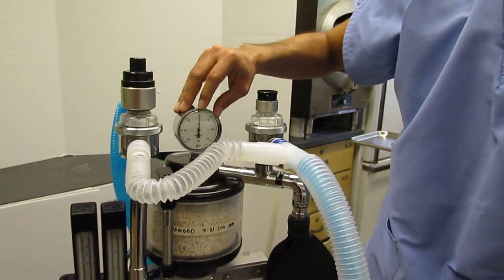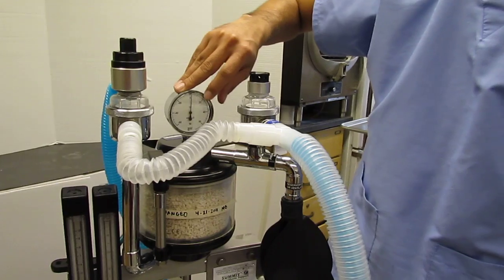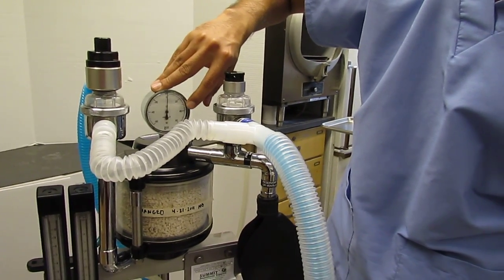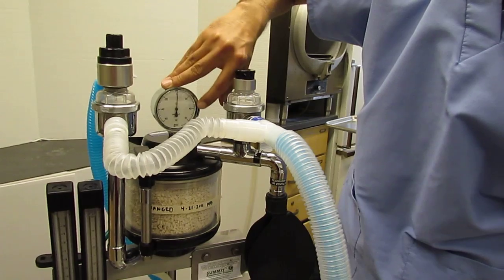So you never want to see this go over 20 to 40, okay? So you never want to see it go into the 20 to 40 range.